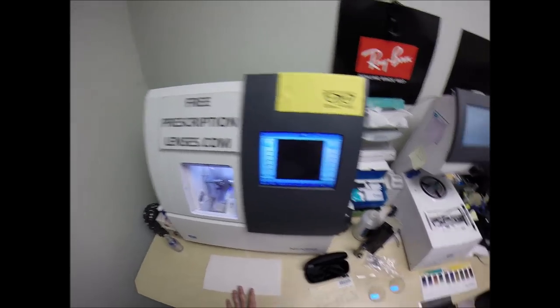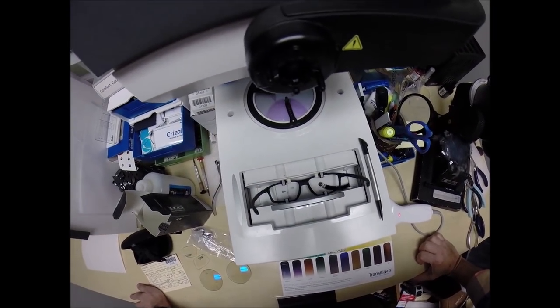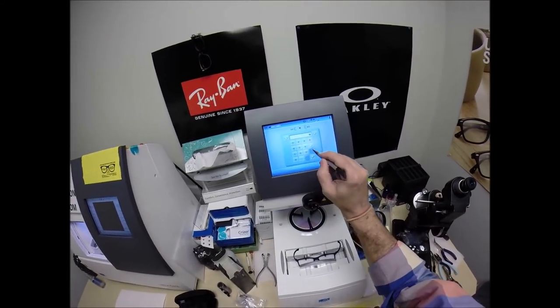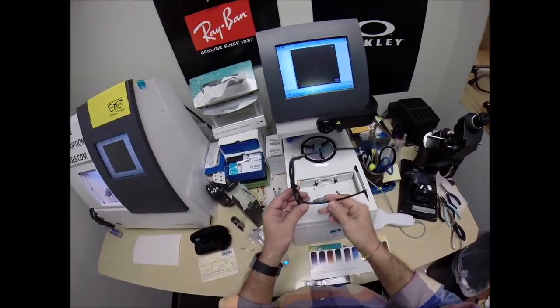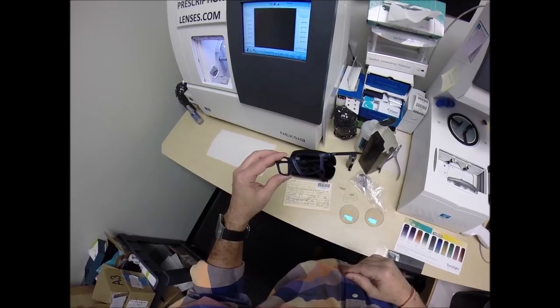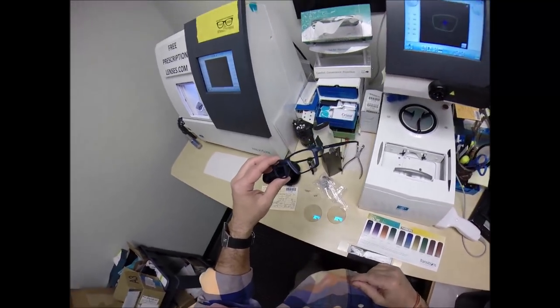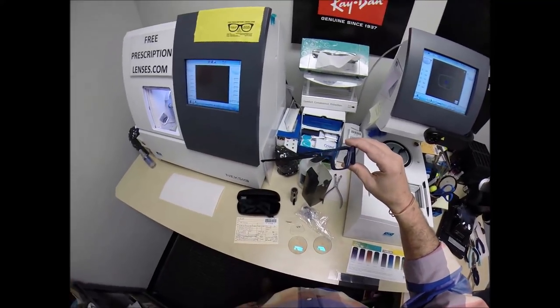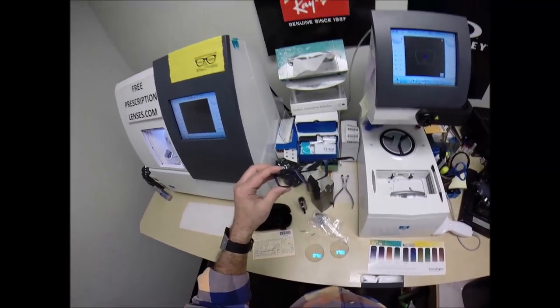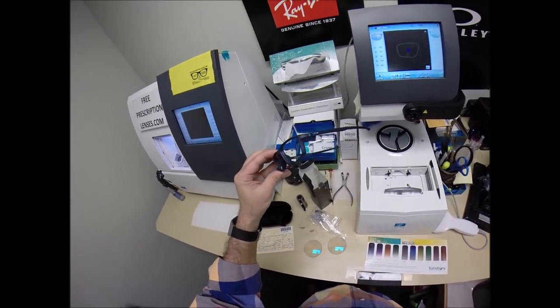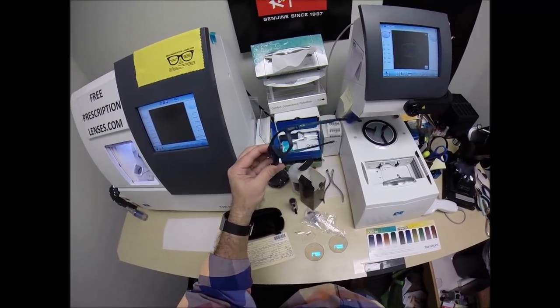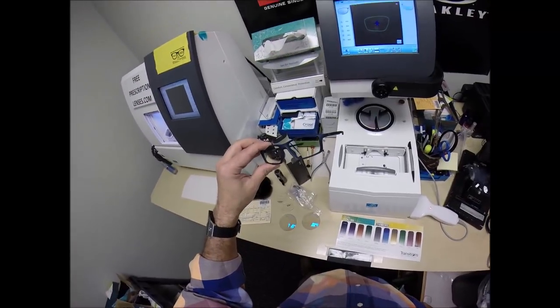Here at freeprescriptionlenses.com, you buy a genuine, authentic Oakley frame and you'll receive one free pair of clear single vision prescription lenses. My receipt has my federal ID tax number, so if you have vision insurance or flex dollars, you will get reimbursed for this purchase. I am an authorized Oakley dealer, a small independent lab.